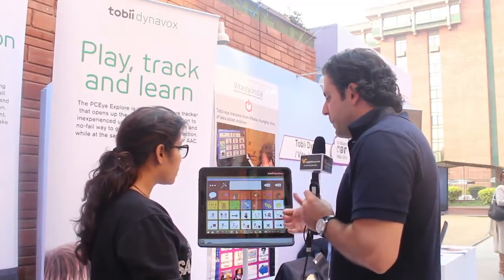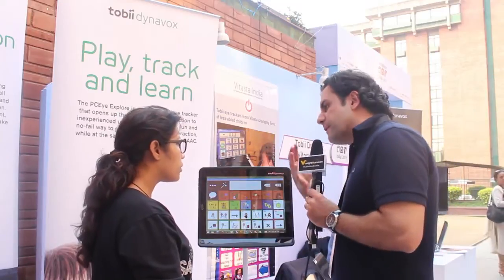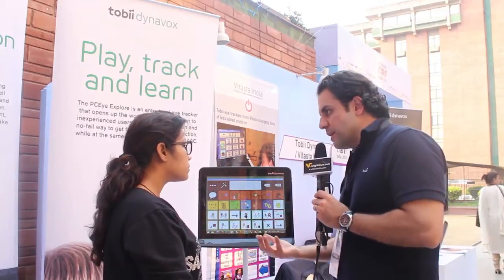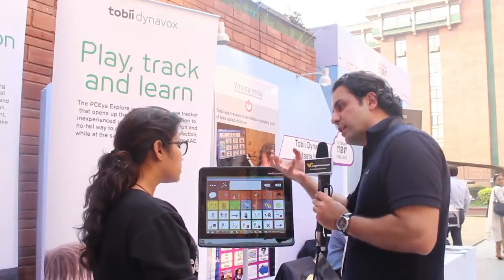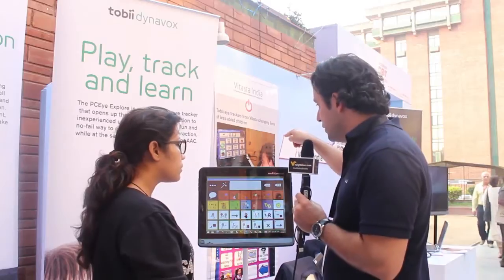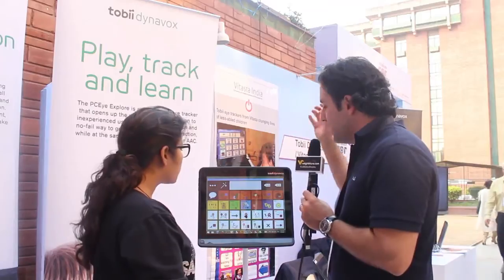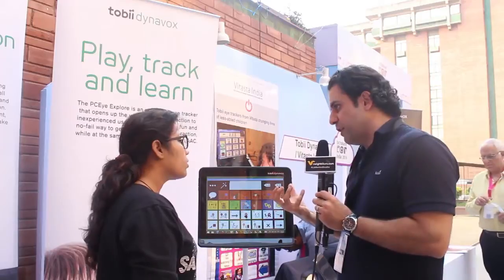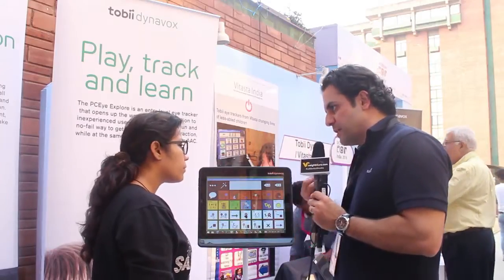The idea is that depending on your cognitive level, we will give you an interface that will allow you to express yourself. If you have an individual with, let's say, severe cerebral palsy, they are likely going to use an interface with symbols. They will look at a symbol, and then that symbol that they look at will generate a voice. We have an example in the background, Ganga from Shishur Savai in Calcutta. She has cerebral palsy. She has an interface where she can look at different icons, and these icons will express a voice because she cannot talk herself. So this becomes her only way of expressing herself.